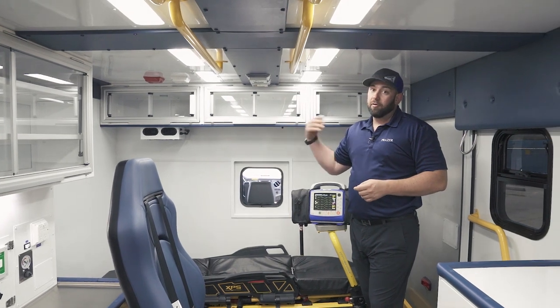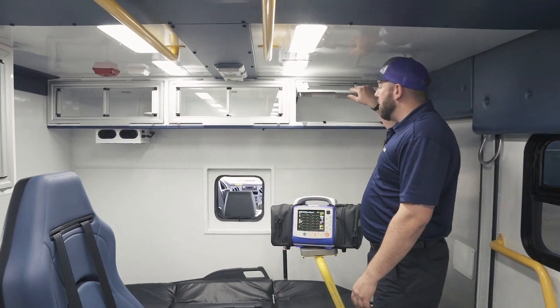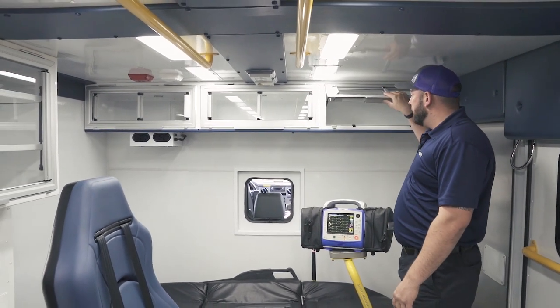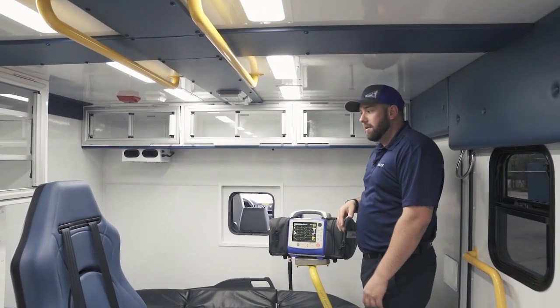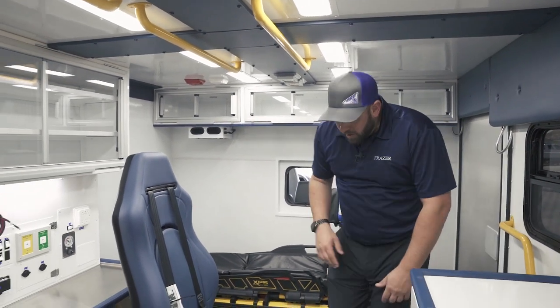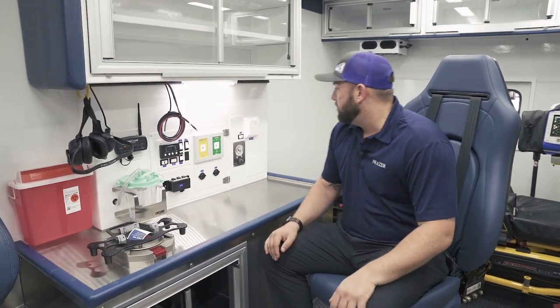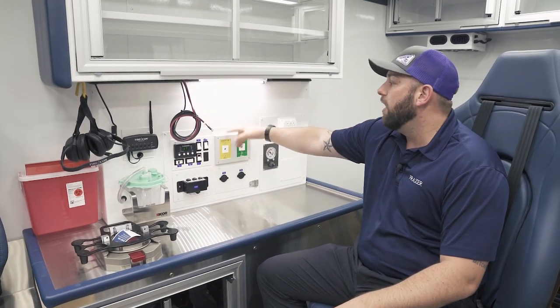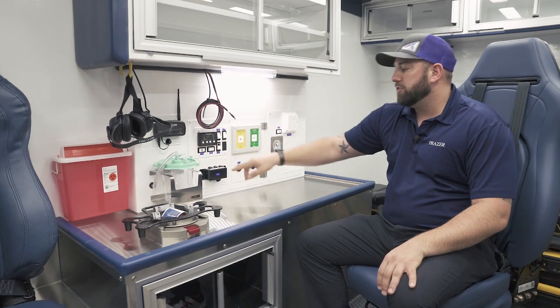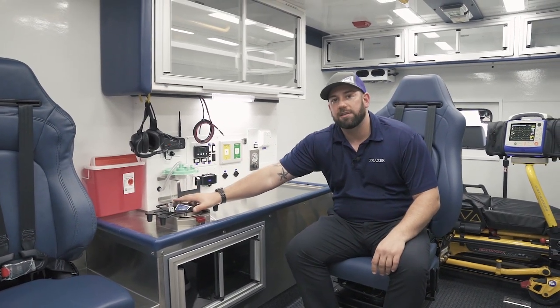Austin hardware cabinet doors on all of our cabinets — they flip open, they slide, and most importantly they're SAE certified and tested, which is a really big deal. The action area over here has pretty traditional features: 120-volt power, 12-volt power, USB power, medical breathing air, action area light, thermostat and switching. We also have a suction unit and an SAE crash-tested Technomount for — I believe they use a Zoll monitor.